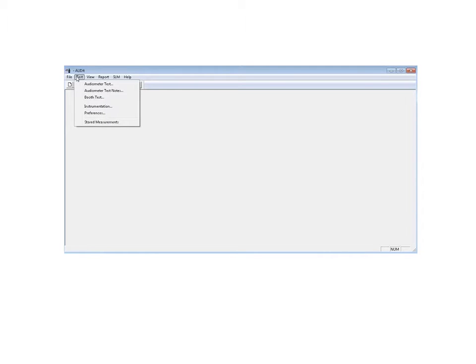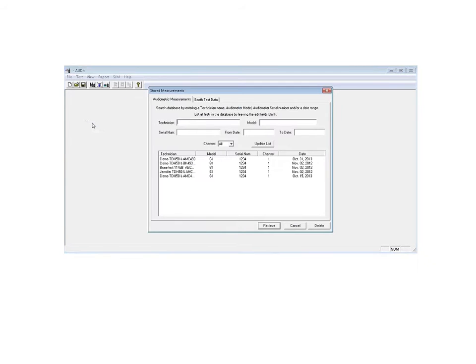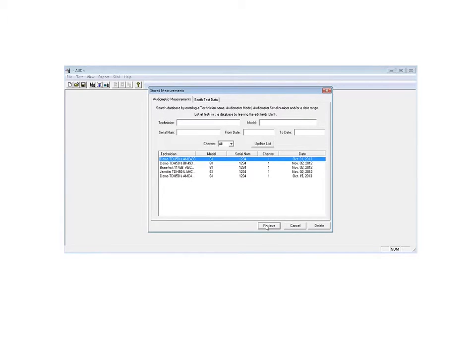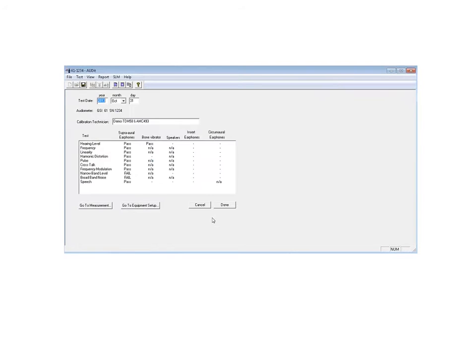Once that's all entered and you're ready to make a measurement, you can just tell it to go ahead and make that measurement. We'll bring in a demonstration measurement for today by retrieving that measurement.